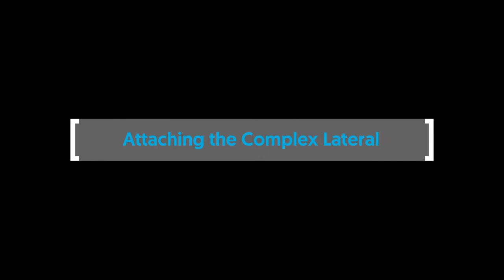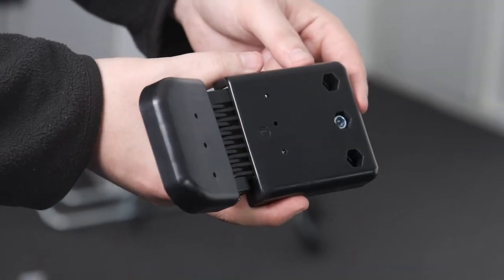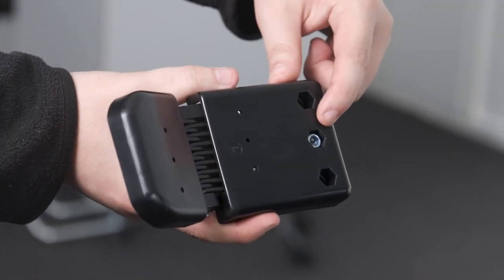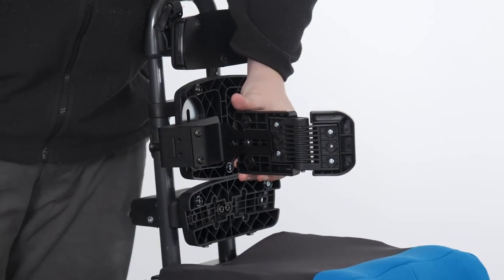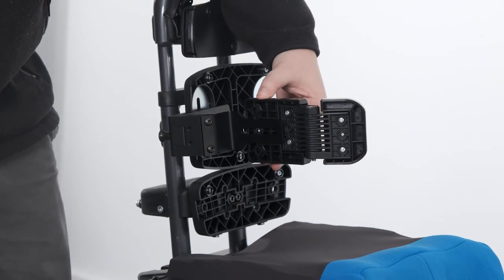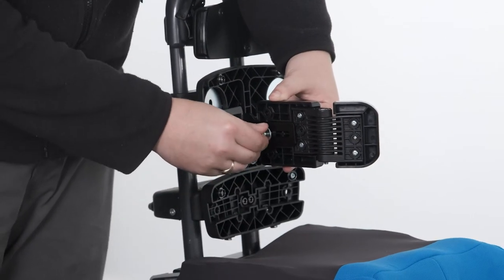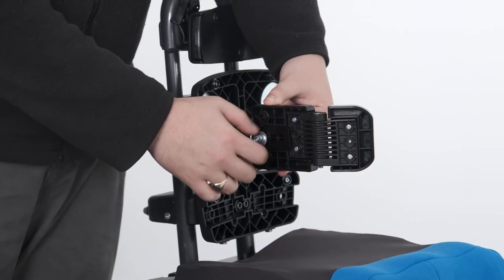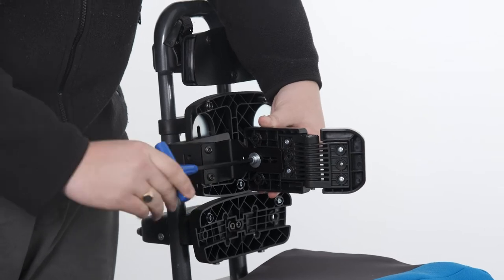Attaching the complex lateral. To attach the complex lateral to the lateral bracket, first place the nut into the recess of the lateral plastic moulding. Position this assembly against the inside surface of the lateral bracket so that the bracket locates into the recess of the plastic moulding. Place the plane washer onto the bolt and pass it through the hole in the moulding, engaging the threads of the nut. Secure in place with the Allen key.